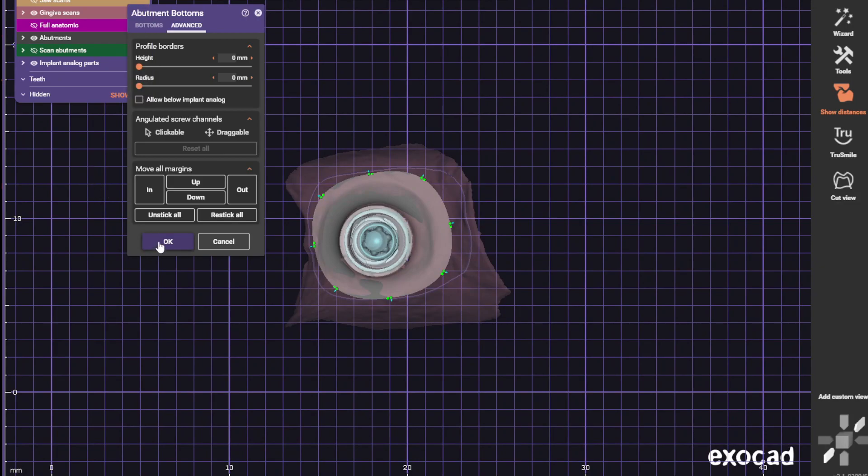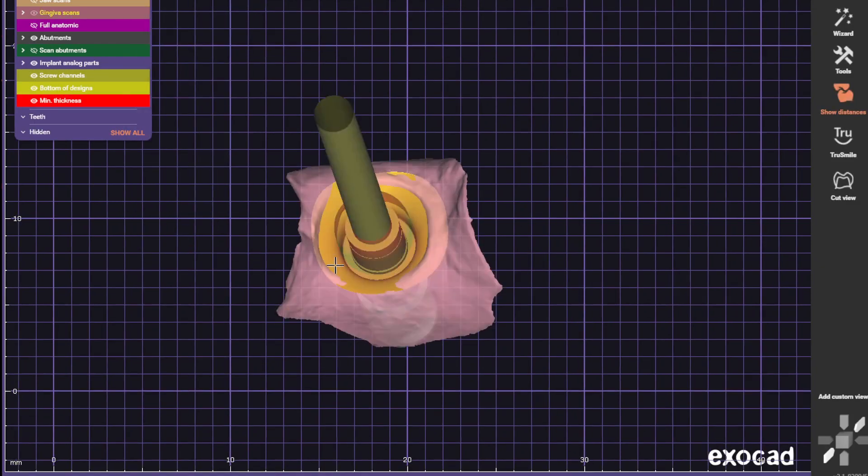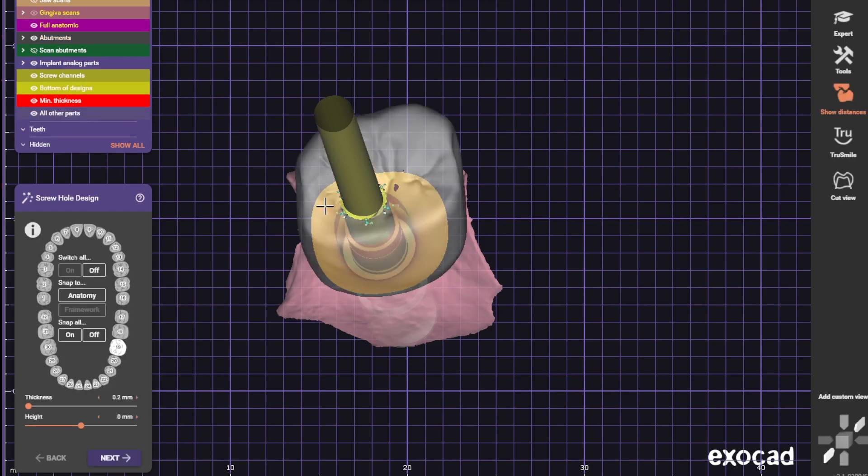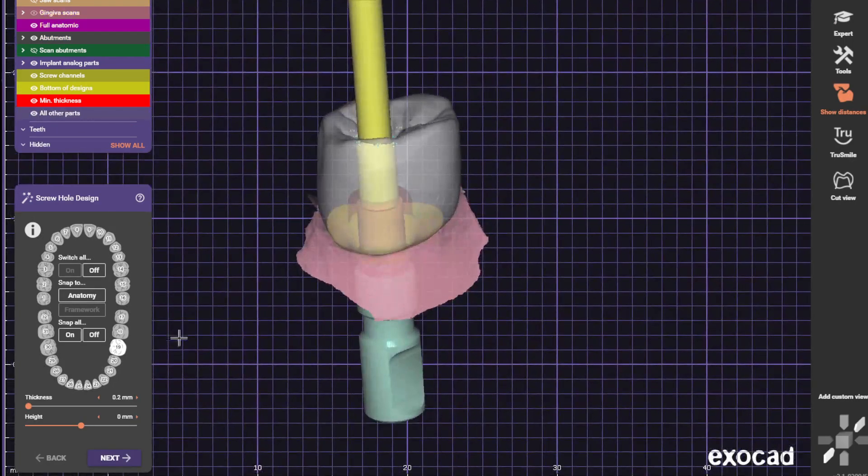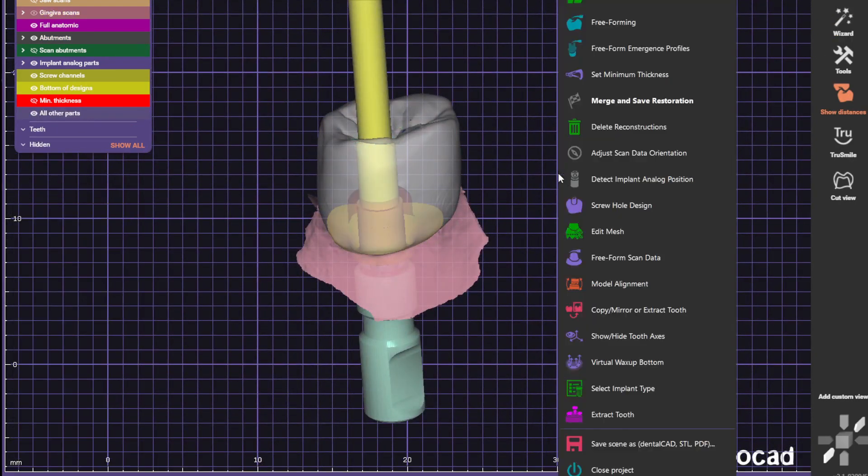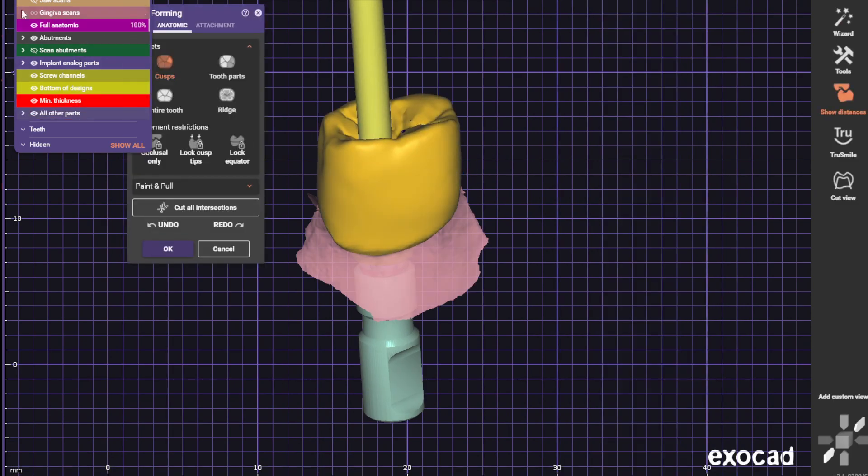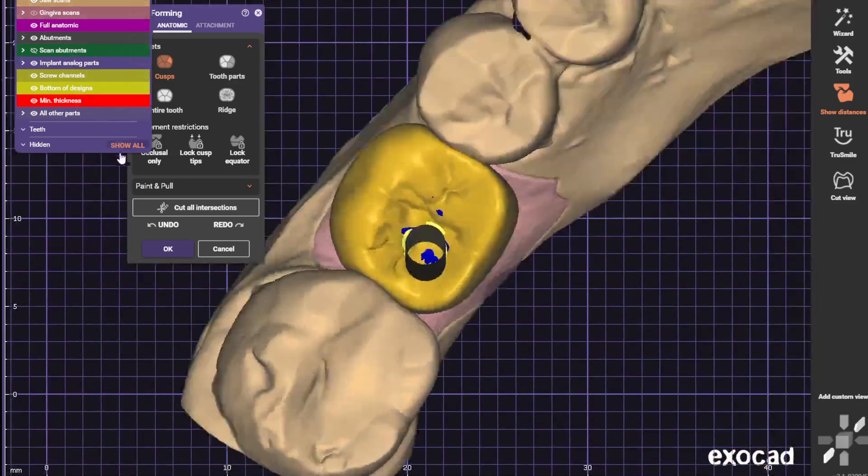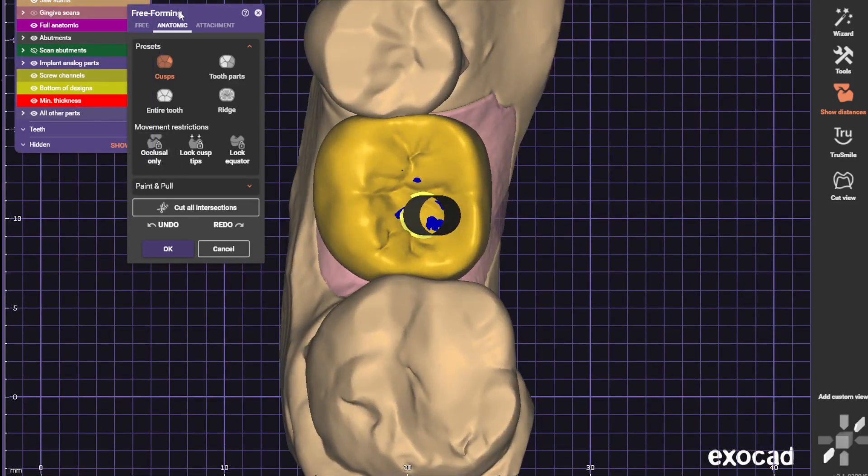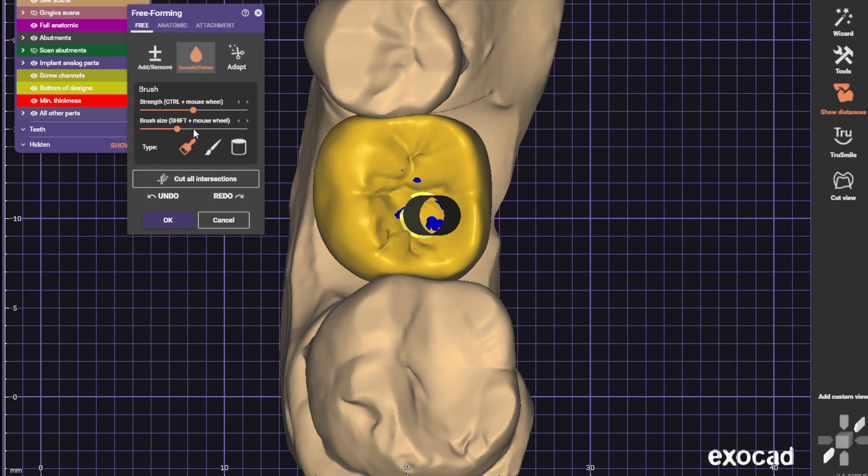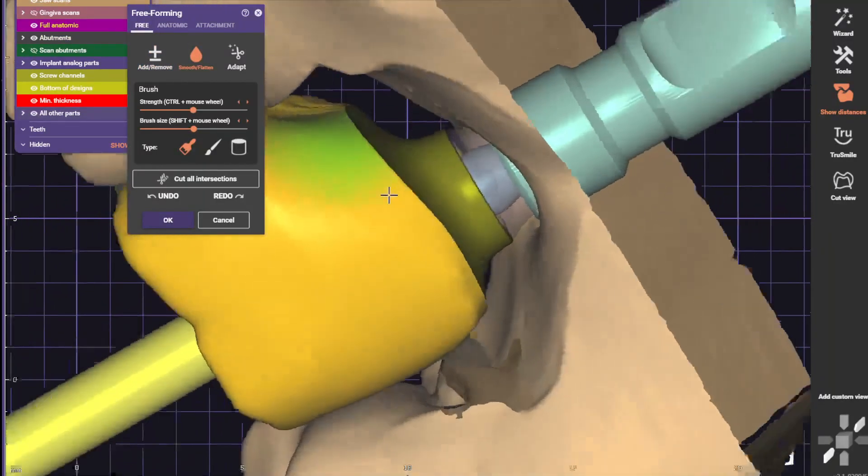Go ahead and adapt the crown. This margin—oh no, it's free form. You don't have to feel bad about it either.